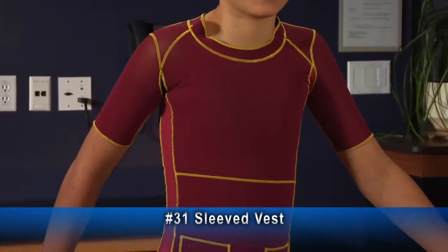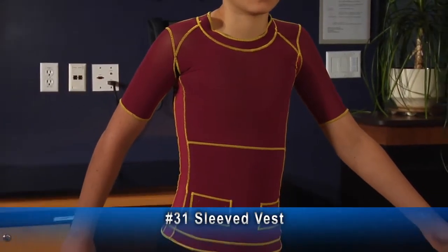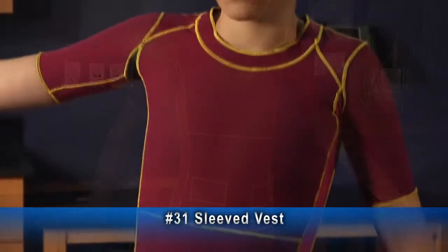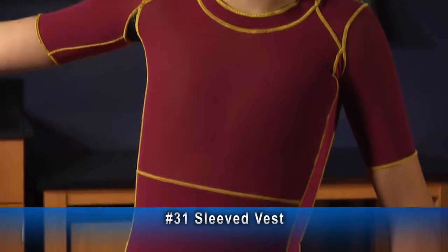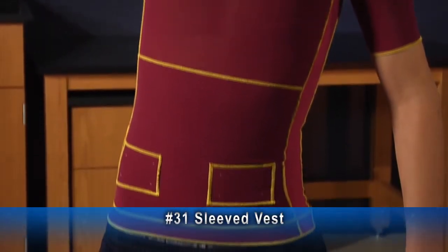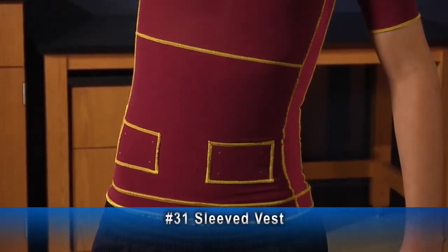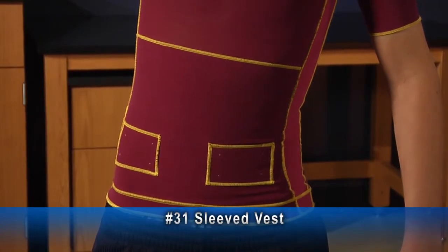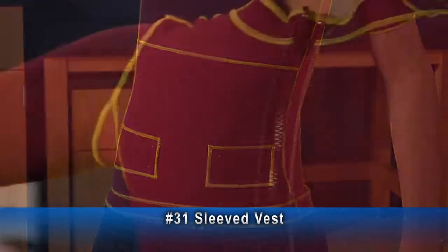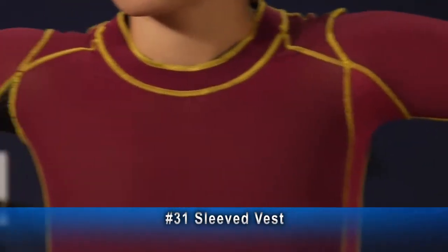This example of a number 31 is a sleeved vest with a lining and expansion panels, with reinforced tabs to overlap with lower extremity garments. These attach with Velcro on the inside of the vest to the Velcro on the outside of a pair of pants. The zipper is in the back and the neck is scooped.